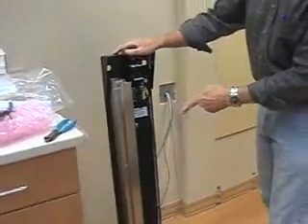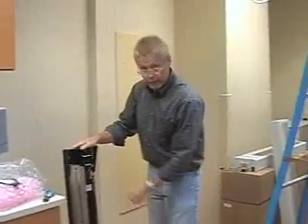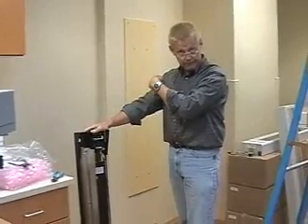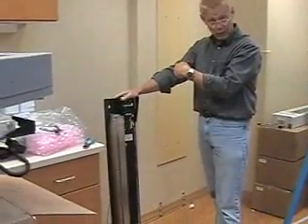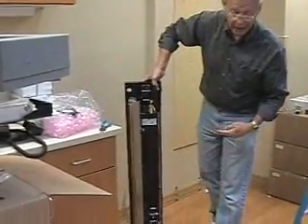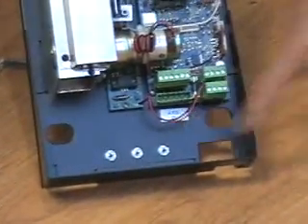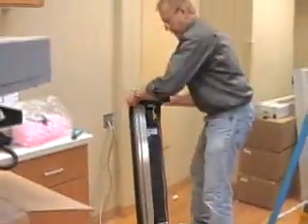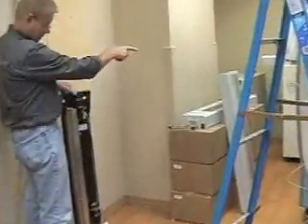We're going to mount this laser arm to this plate. As you're looking at the CT machine, this is the left side of the room — it's going to be Z1. The way you find out which arm is Z1 is by checking the small marker at the bottom that says Z1.